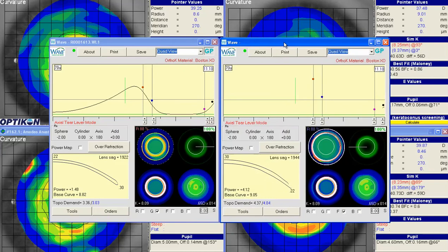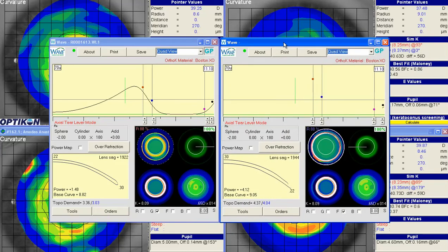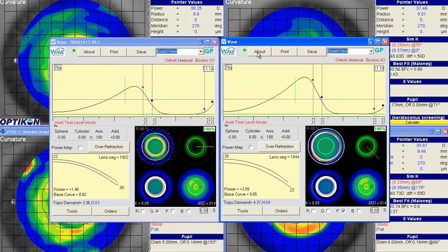I'm going to move this over and we can compare it to the original one. Okay, so now we have a new lens, which is, in many respects, the same as the previous one. We have the same diameter, the same OZ and IC placements for those points.